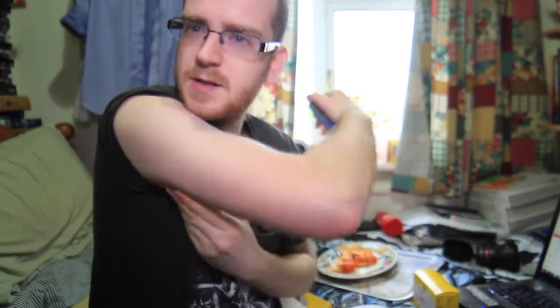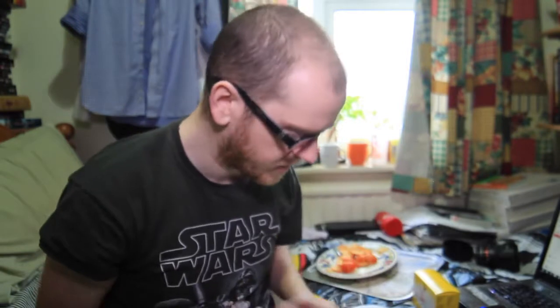So where am I going to put this on my arm? Lean arms — no biceps, as you can see. I can see a little bit of fat there. I'm thinking I'll do it around about here. When I'm cycling, clothes get a little bit tight, but it should be okay and shouldn't cause it to come off. I'll probably just put it about here on the back where it's most fleshy.